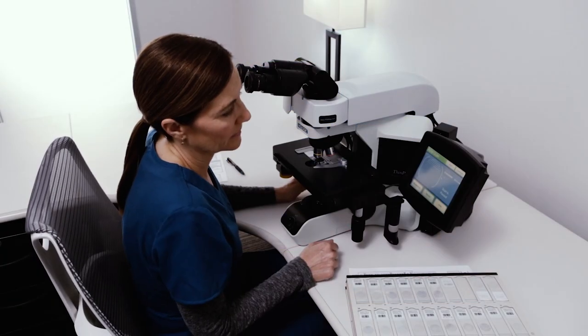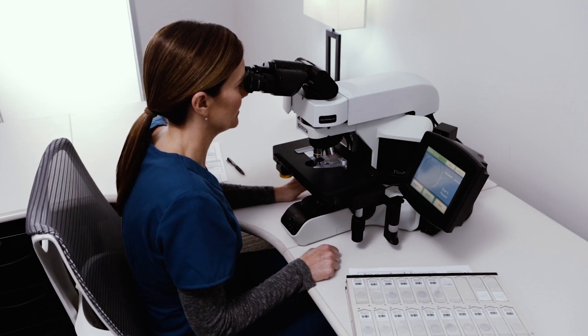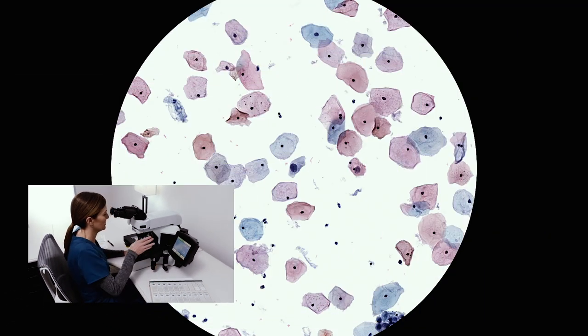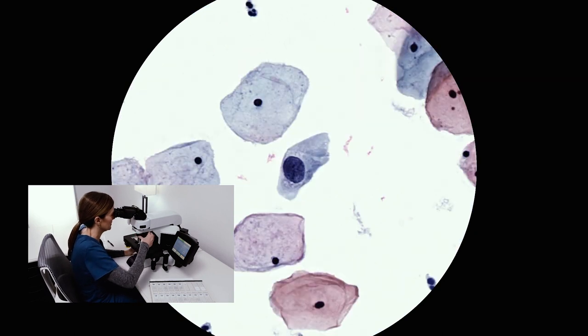The cytotechnologist retains complete control over the microscope stage during the review process. Any cells can be assessed, providing flexibility for accurate slide review.